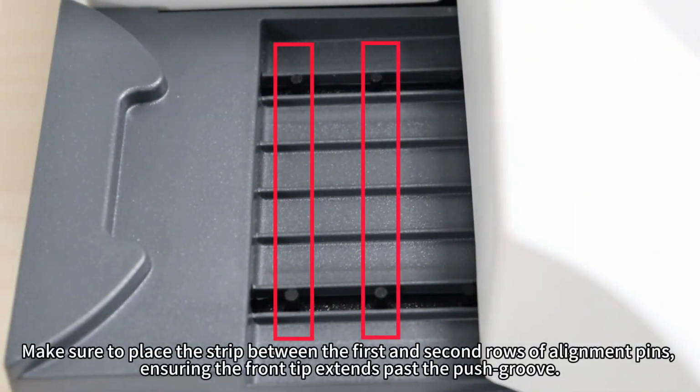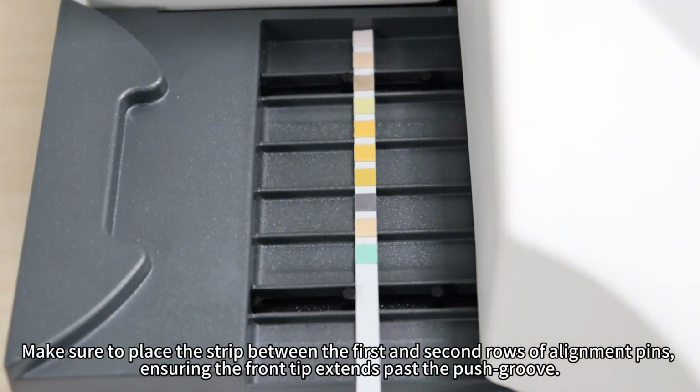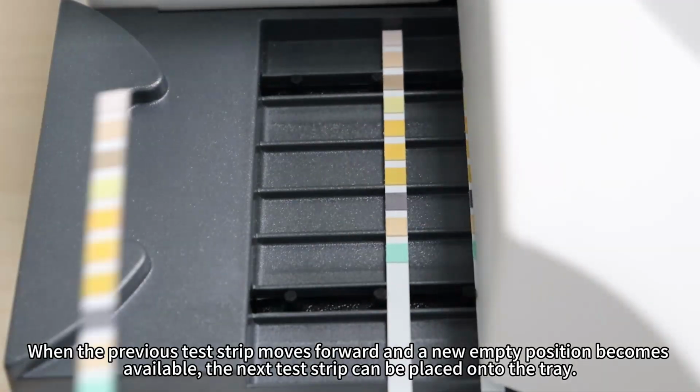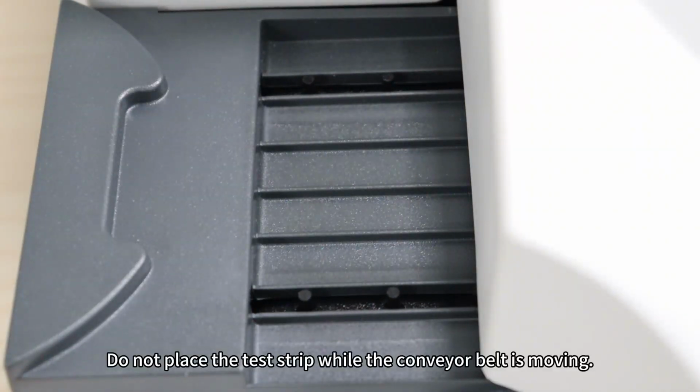Make sure to place the strip between the first and second rows of alignment pins, ensuring the front tip extends past the push groove. When the previous test strip moves forward and a new empty position becomes available, the next test strip can be placed onto the tray. Do not place the test strip while the conveyor belt is moving.